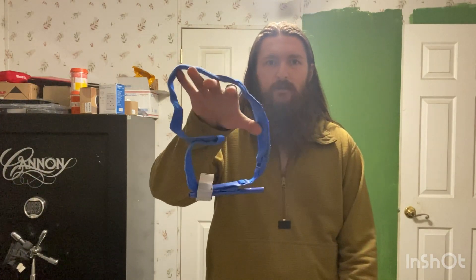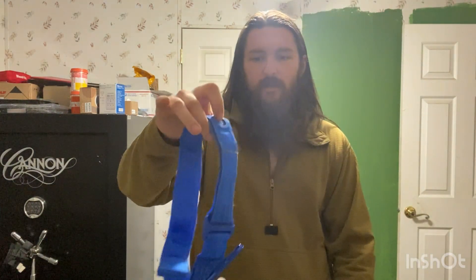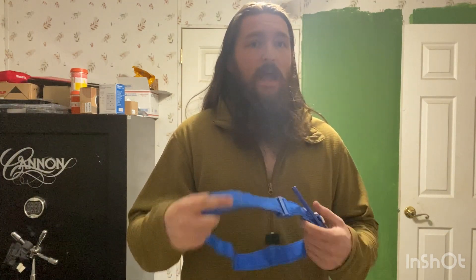I'm going to do a demo of putting this on myself. I'm not going to demonstrate how to stage a tourniquet, but basically you want it set up so you can open it with one hand to this large loop — because if this arm is injured or not there anymore, you only have the one. One-handed opening, you want the loop already made, because fishing the little strap through is a pain. The only time this is an issue is if you have a compound fracture where stuff is fanned out and it won't fit, but that is kind of rare.